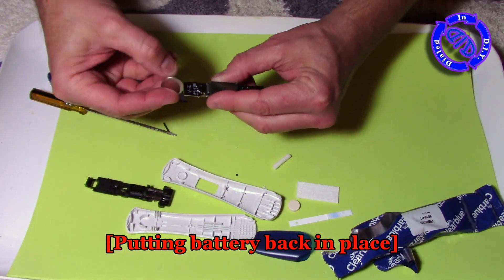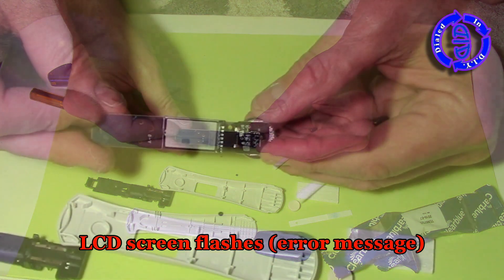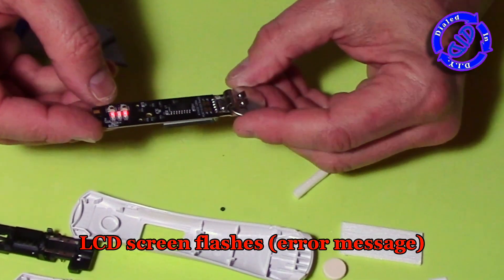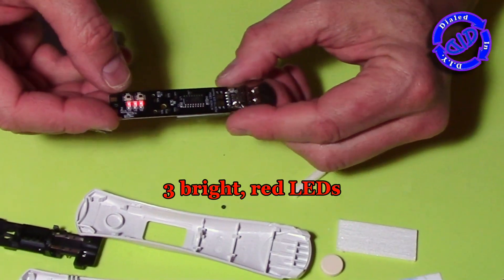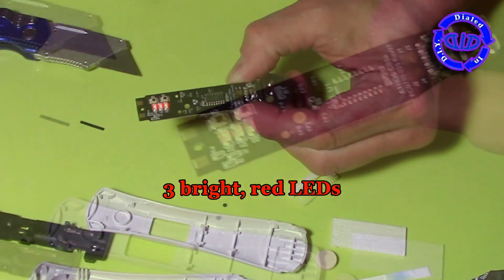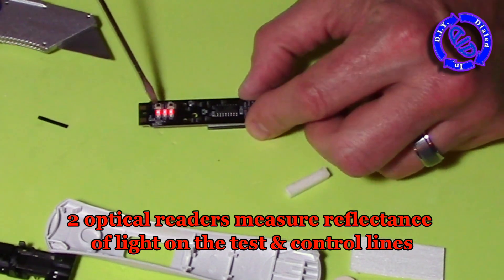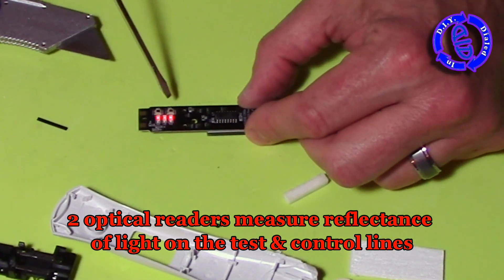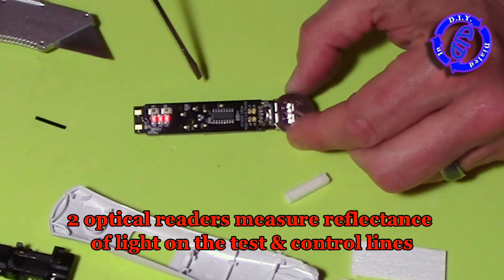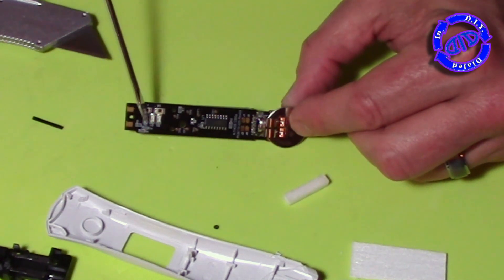Now for fun, let's put the battery back in and fire up that microcontroller so we can take a look at what these electronics can do. With the other components removed, our little LCD screen is just flashing an error message, but you can see the general readings it would normally give. On the other side, we have these three bright red LEDs, which are next to two optical readers that use a chromatographic principle to basically separate bound and free-colored labels off of those test strips. All it's doing is measuring the reflectance of light and then using that to give us an indicator of our test results.